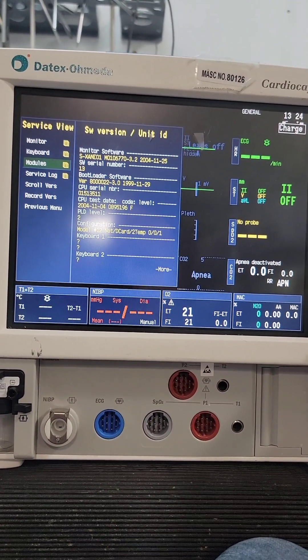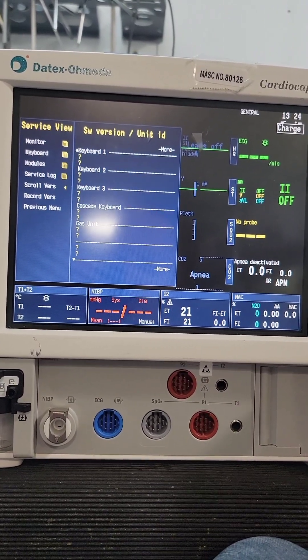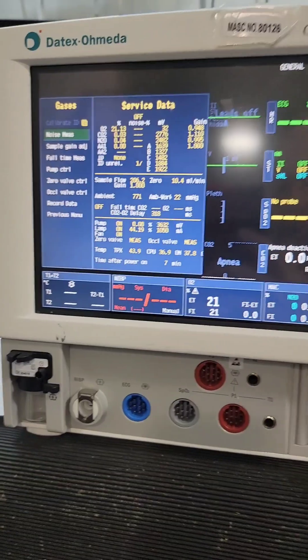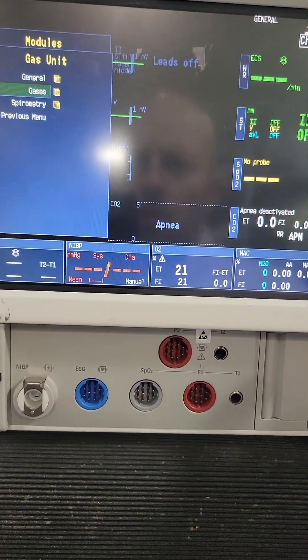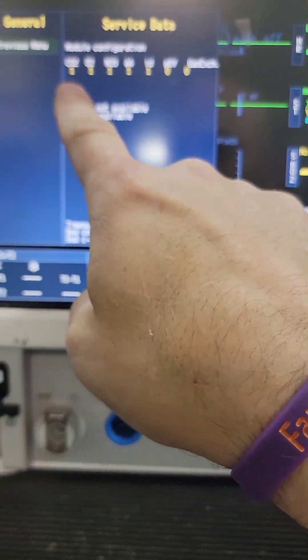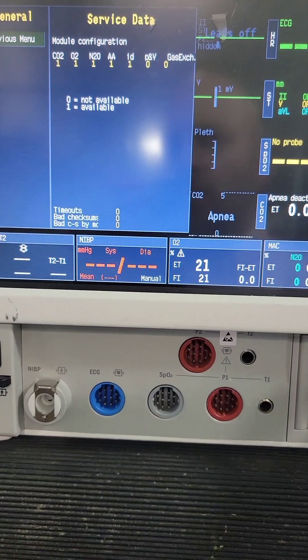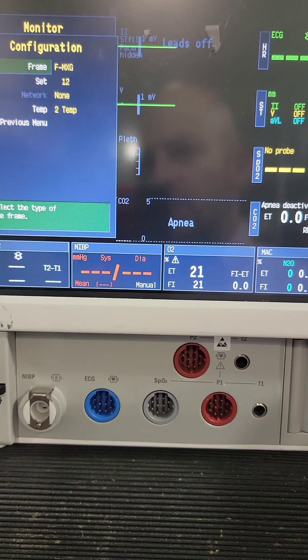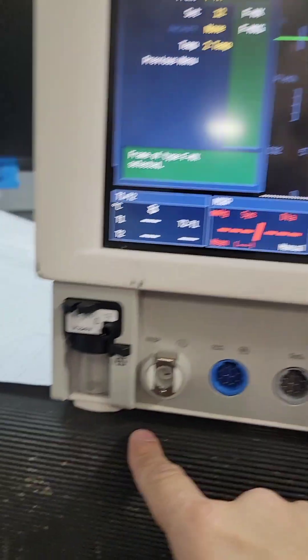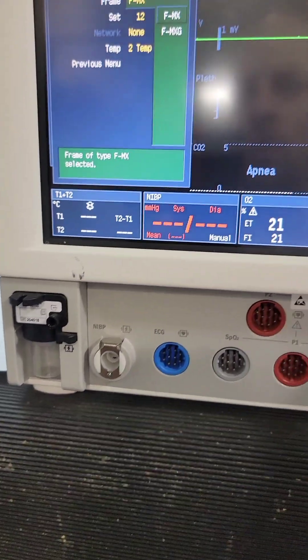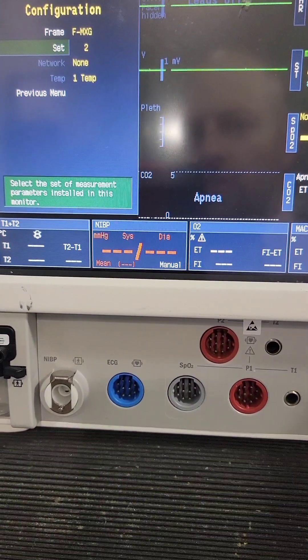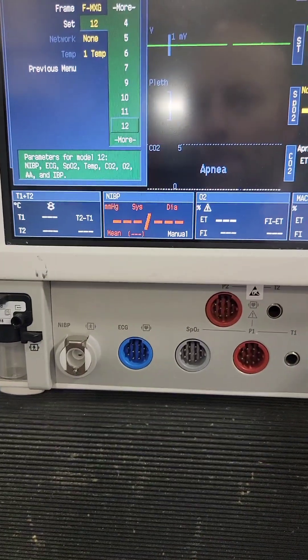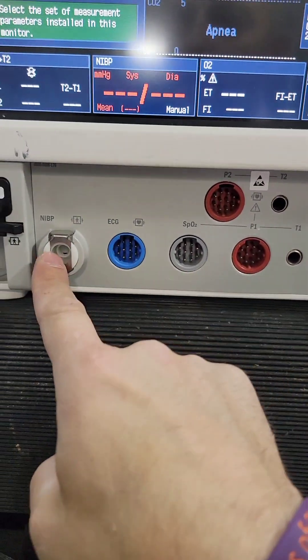Let's get back to that other window I was trying to show you — still not showing, that's weird. Let me show you these other possible configurations. This one shows CO2, O2, N2O, anesthetic agent — all the stuff in here. So these are the configurations. Remember I said FMX because I don't have any gas. This one has CO2 at least, so we could select FMXG for gas. Then you've got all these different sets showing all the different stuff. Set 12 is pretty much everything: two temperatures, two IBPs, SpO2, ECG, NIBP, and so on.